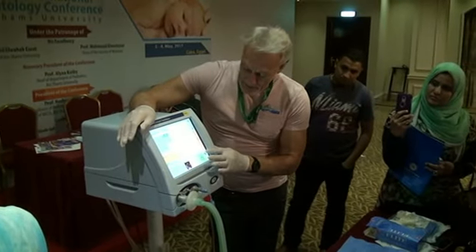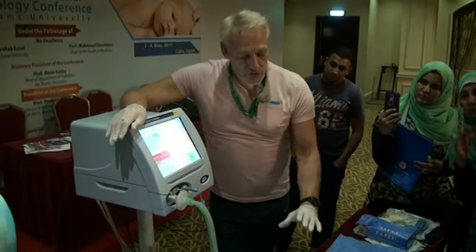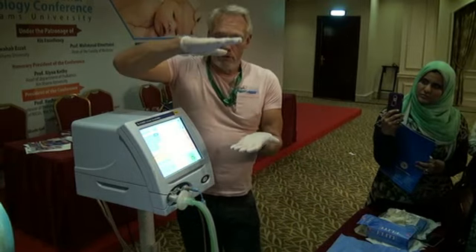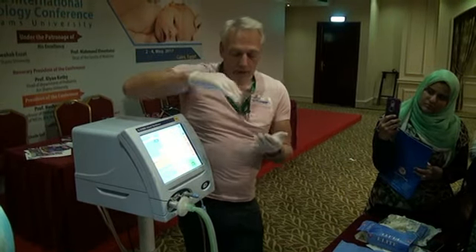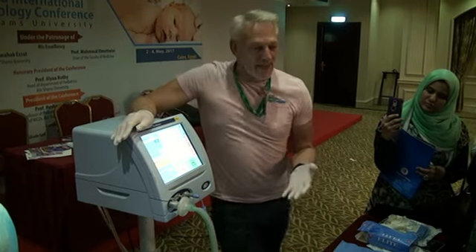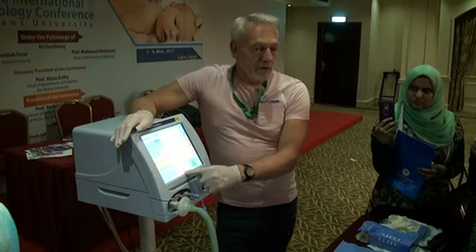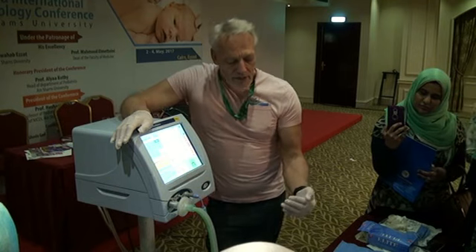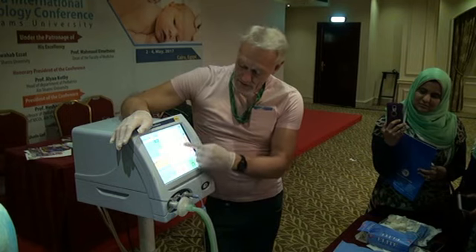If I put my PEEP up even further, up to 8, I've now changed my driving pressure to 20. So the excursion I'm using to open and close the lung is now 20 centimetres as opposed to 28. We know that having a higher PEEP and not allowing this lung to collapse means I'm holding the alveoli open, and that is what helps with my oxygenation. Ignore the fact that it's 8 or 10, it doesn't matter. It's the fact that we need to generate a PEEP to improve our compliance, ease inflation and give us a better looking curve.